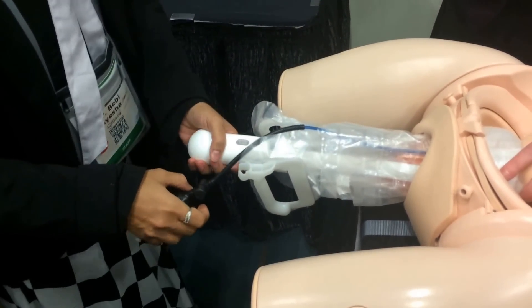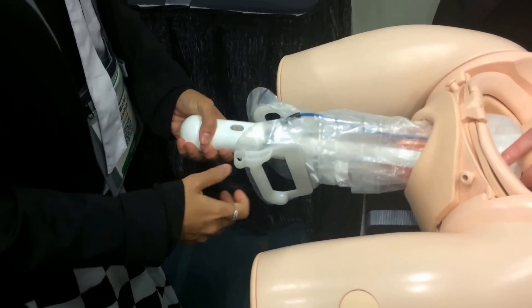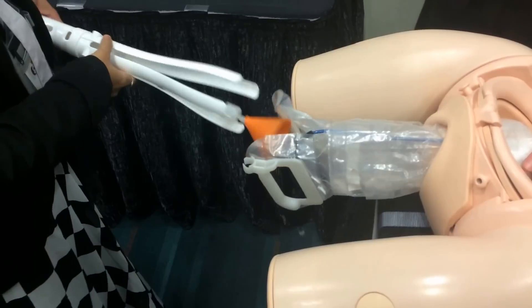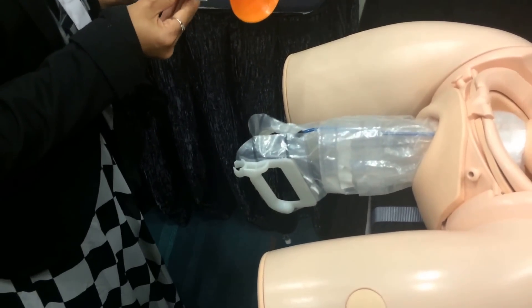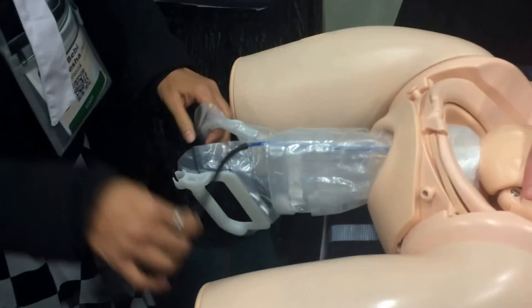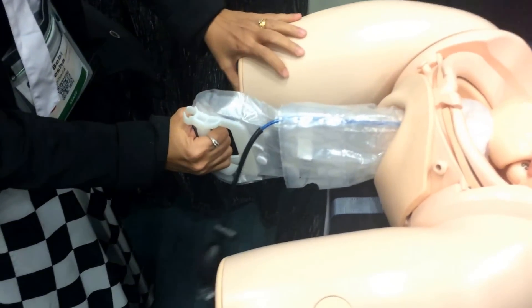Okay, take this away — it will come easily. Just pull it. And then you can get rid of that part. Use the handles to pull.